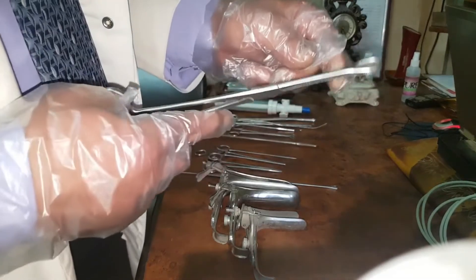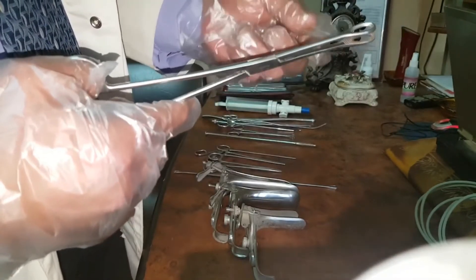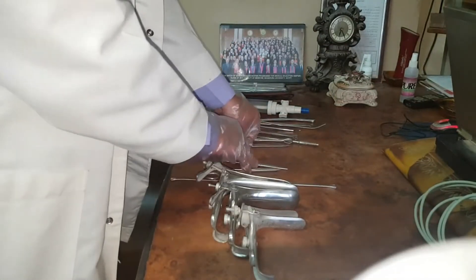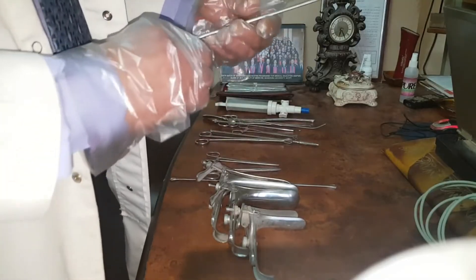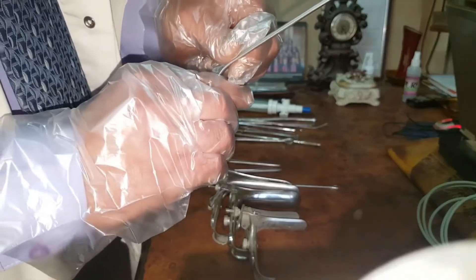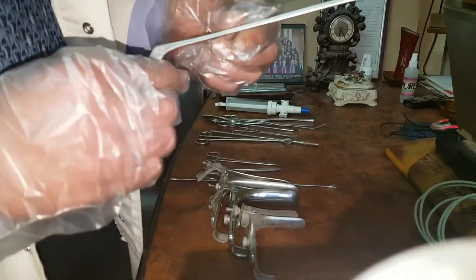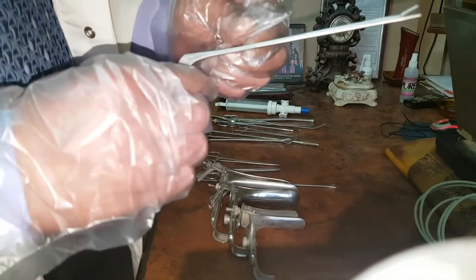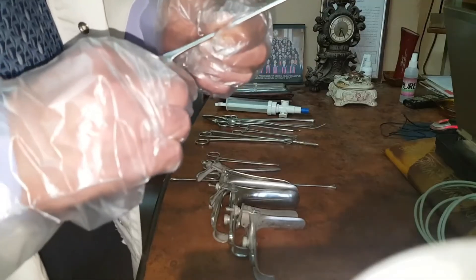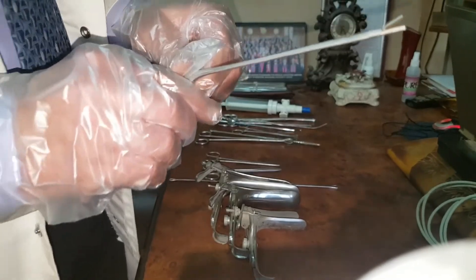This is an ovum forceps used to evacuate the uterine content in case of incomplete abortion. This is the crocodile forceps, with very short blades, used in case of a missed IUD thread. In case of an IUD with missed threads, I can pass through the cervical canal inside the uterine cavity to hold the IUD and get it out. So in case of missed threads, I use the crocodile forceps — it is very beneficial for that.